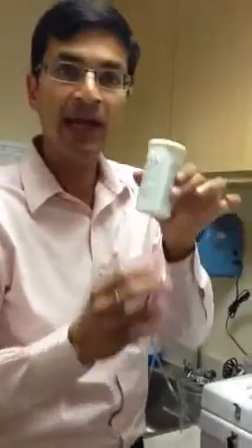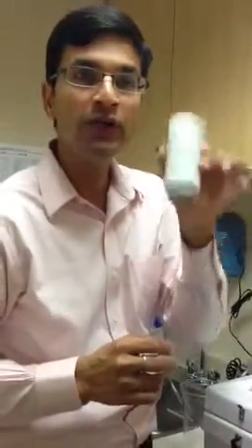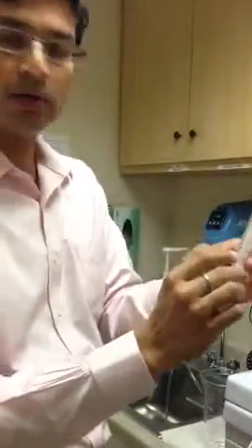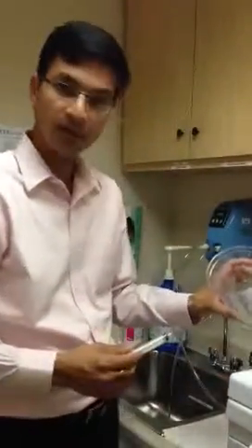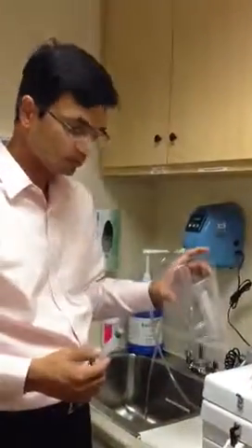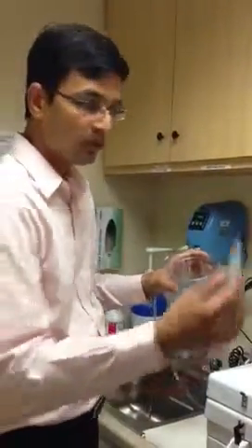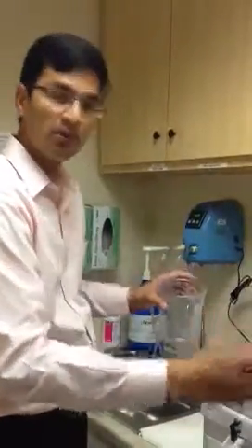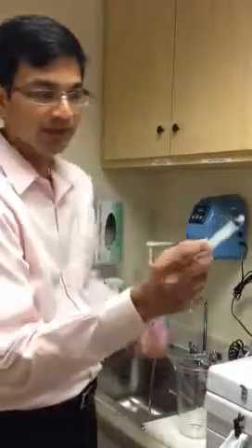The first time any box is opened you need to test the test strips, and this is how you do it. You take 10cc of rapicide and put it in this. Take 10cc of sterile water and put it in it. First you fill in with sterile clean water and the same amount of rapicide. Make sure the readings are at 10.